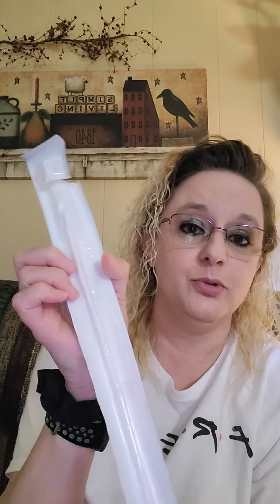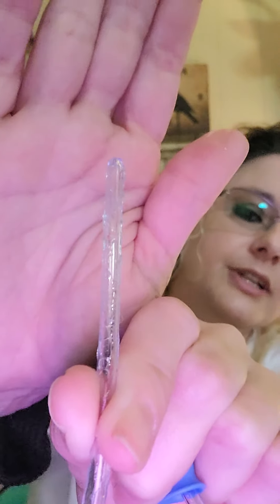If you want to learn more about all that, I've got other videos that you can watch. This is a Cure catheter. This one is a pre-lubricated one. As you can see, there's stuff on here, and that's the lubricant.